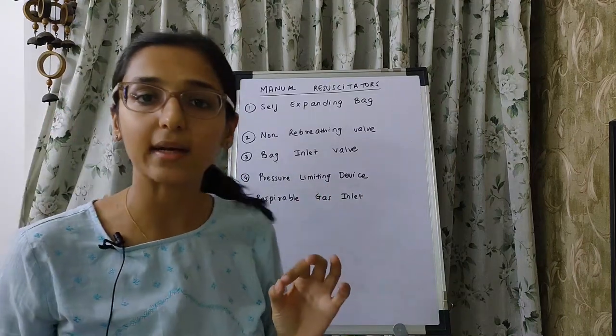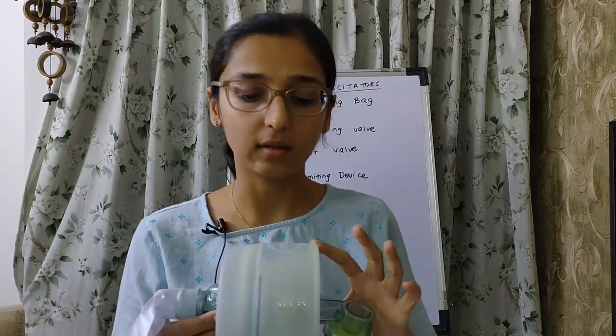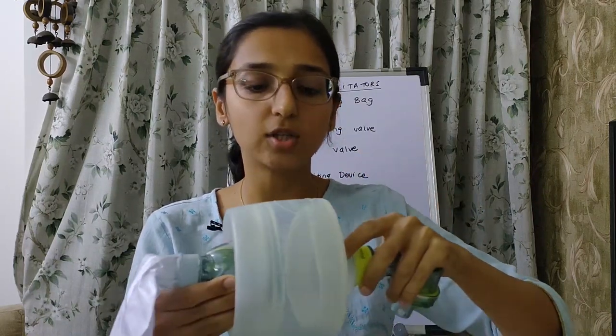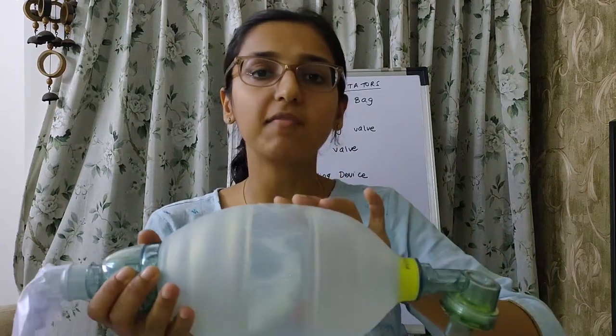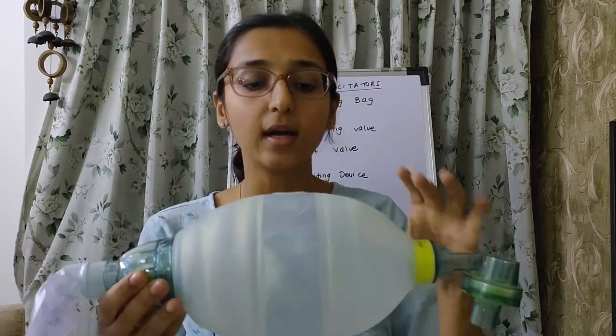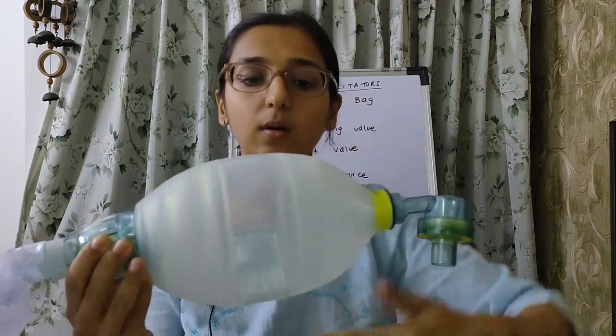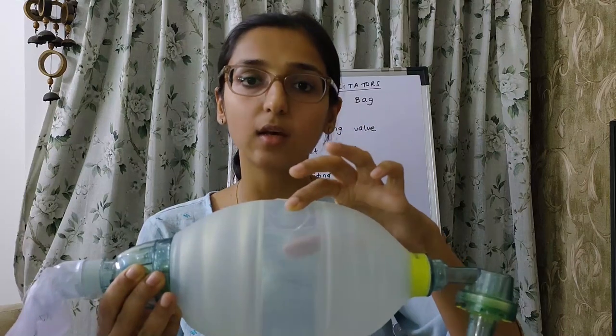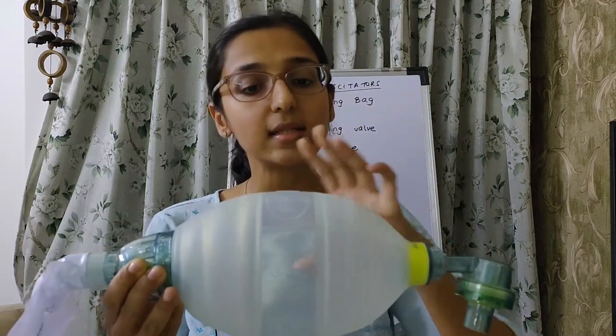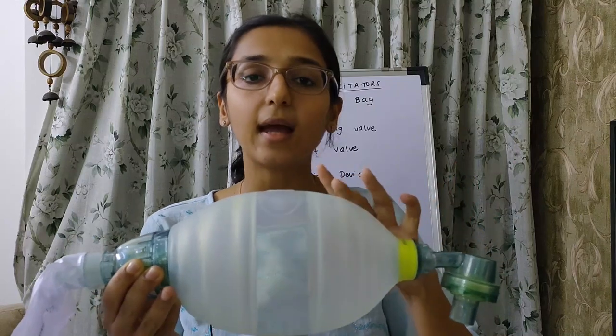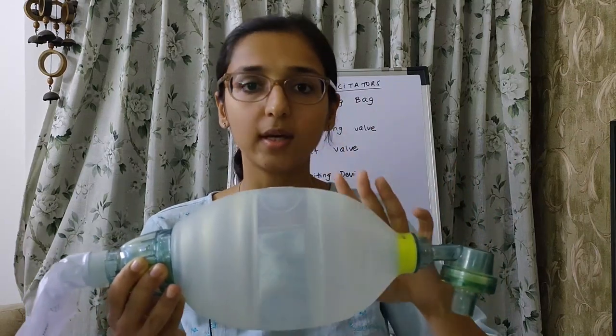The first part is the self-expanding bag. The one I have is the largest part of the resuscitator. This bag is made up of silicone, is transparent, and has circular ridges around it to give it strength, with thick walls. This bag stays expanded in the resting state and expands during expiration.